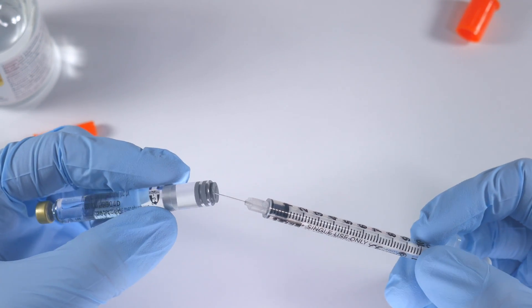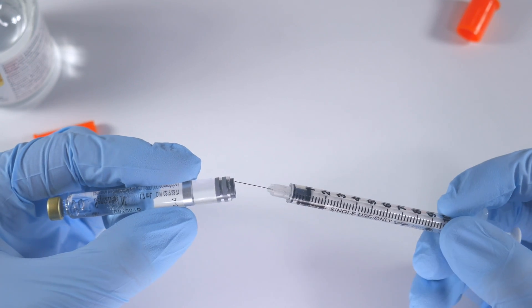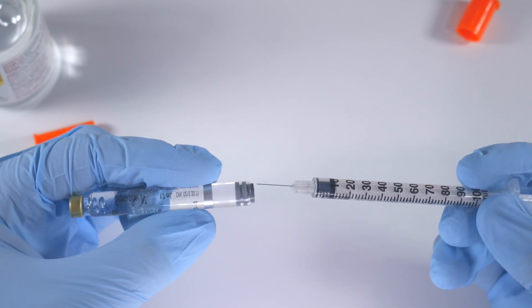Now you'll notice, just like I mentioned, this stopper is poking out a little bit, but this still fits within your syringe. You'll be able to inject no problem for your patient.